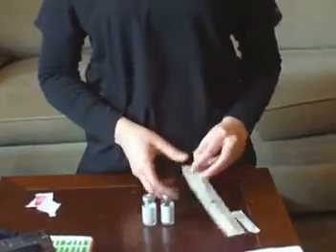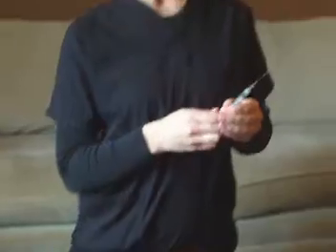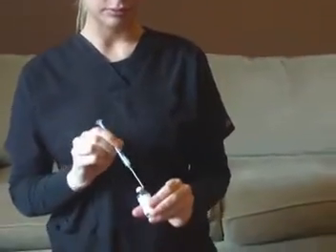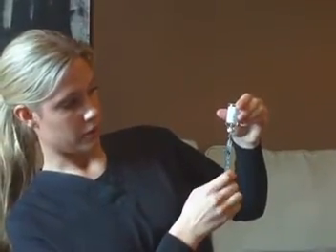We're going to use our syringe with a 22 gauge needle to draw off the water. Now for the trigger shot, you will only use 1 ml or 1 cc — same thing — of water. So I drop the air first, and then I'm going to draw 1 ml of water.